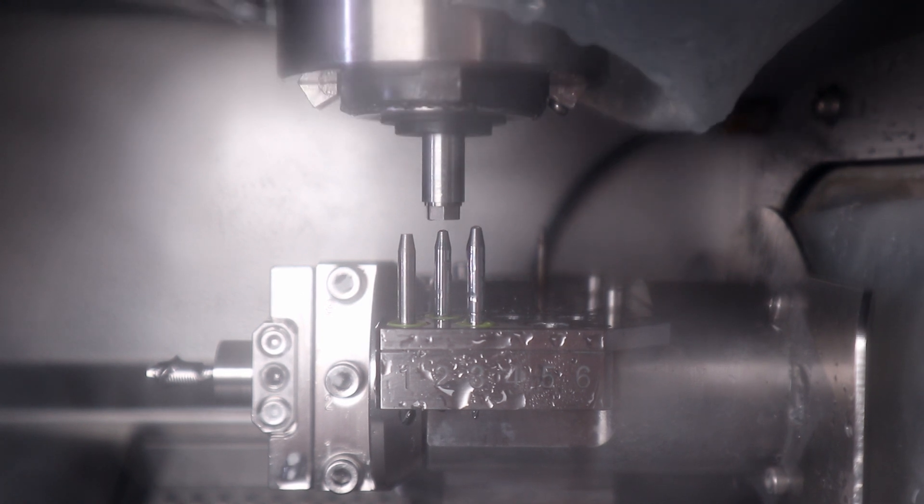A second burr is used to start finishing the surface of the titanium abutment.